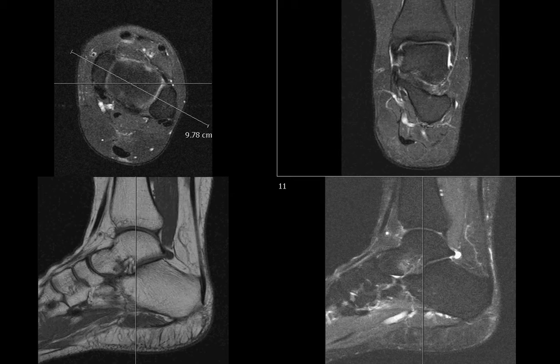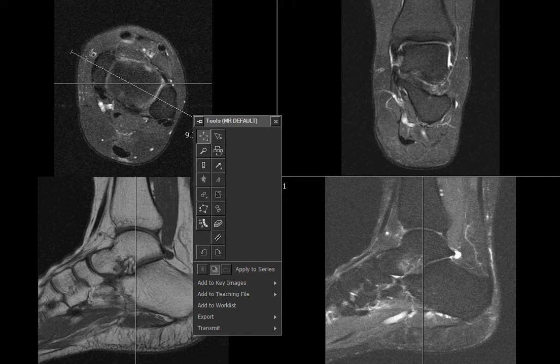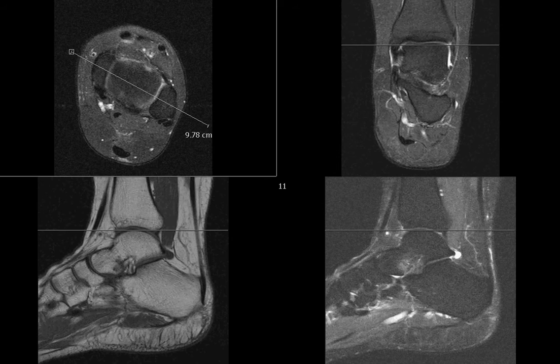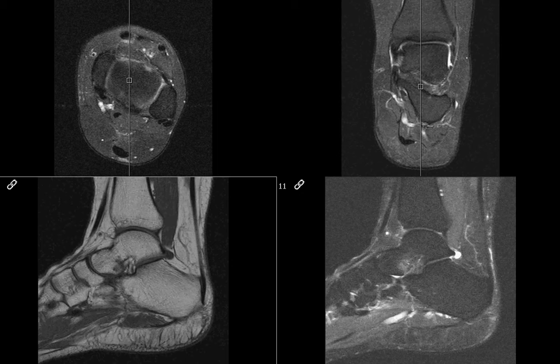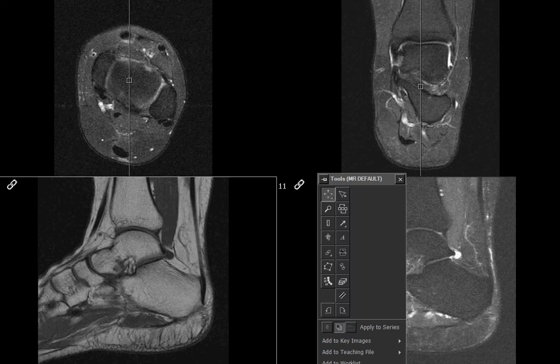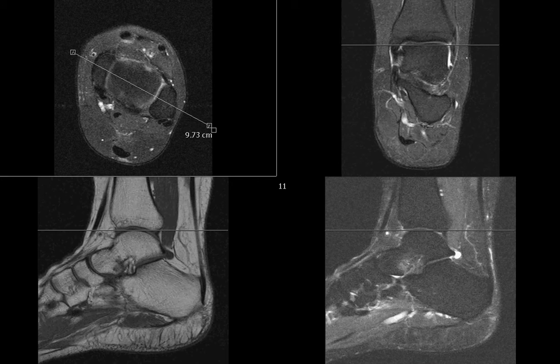Similarly, on the sagittal planes — which don't look as bad or aren't as noticeably wrong — look at the cut line again: it's totally perpendicular to the table position instead of being perpendicular to the ankle. So what we want for sagittal images would be lines perpendicular to the malleolar line, something like this orientation.